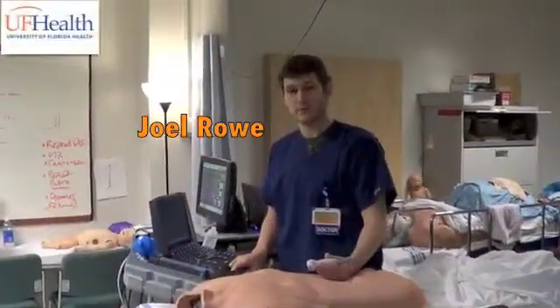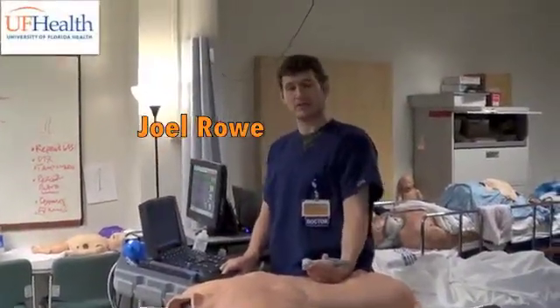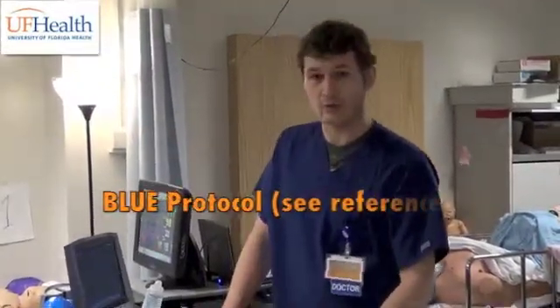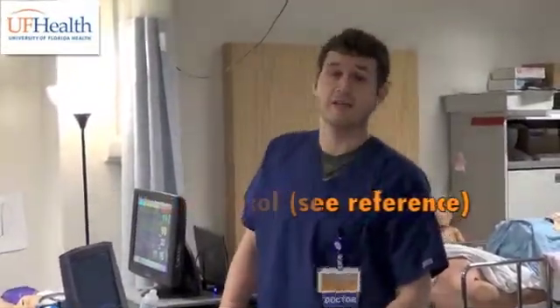My name is Joel Rowe. I'm one of the emergency medicine residents. I'm going to be discussing the BLUE protocol lung ultrasound, which is one of the protocols that can be used in evaluating patients with respiratory distress.